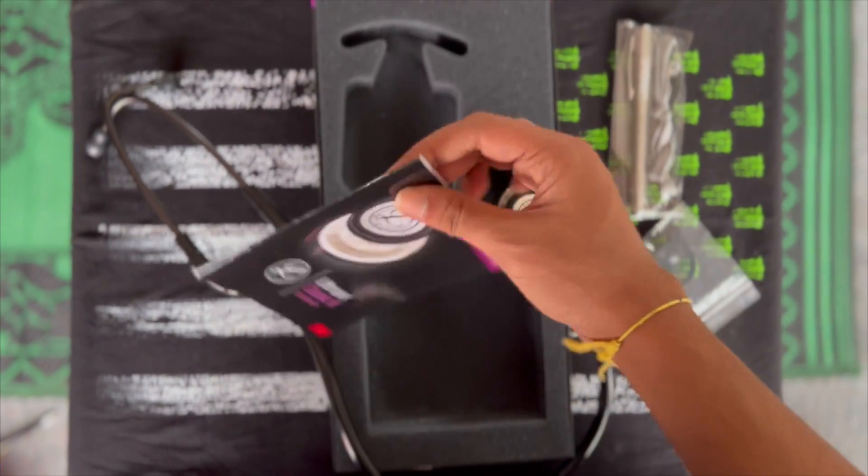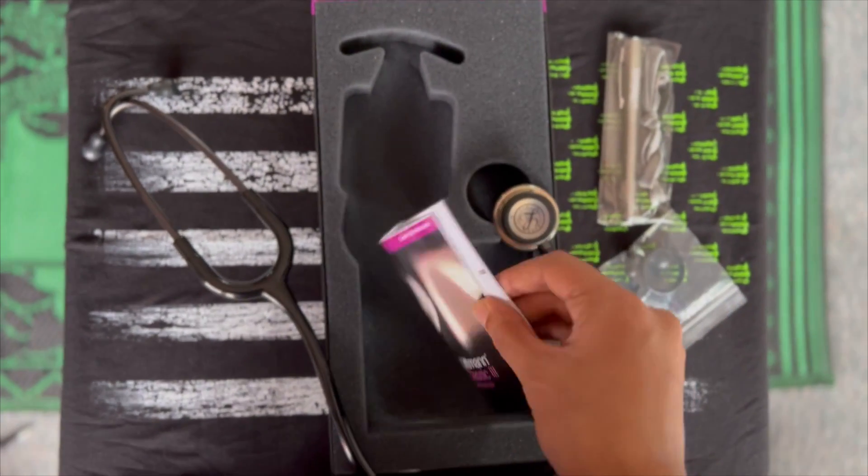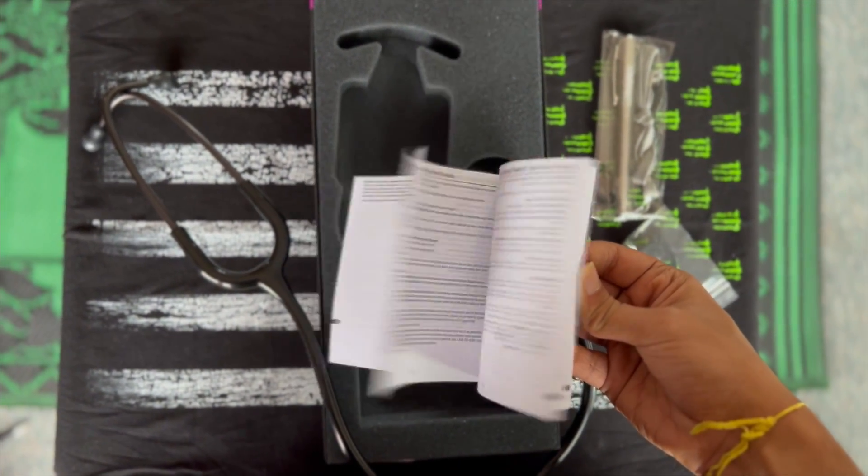And that looks like the manual, which I should probably read and probably won't. Have a quick flick through — and that's us.